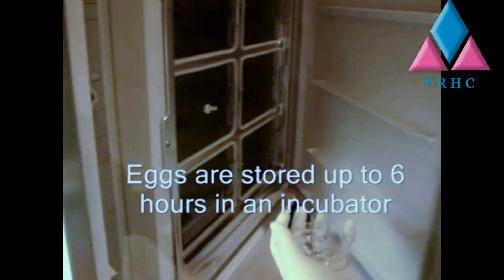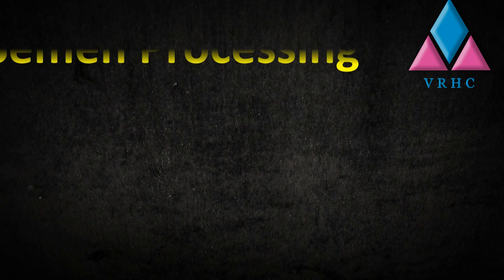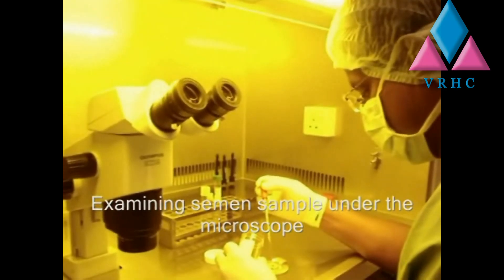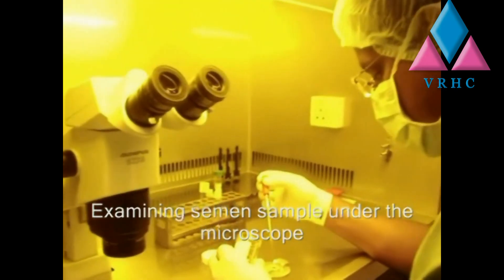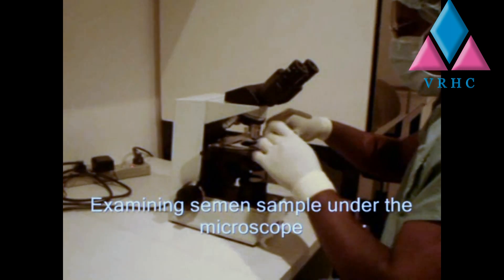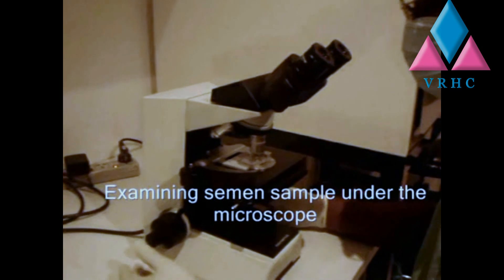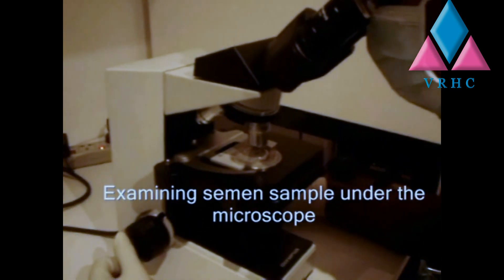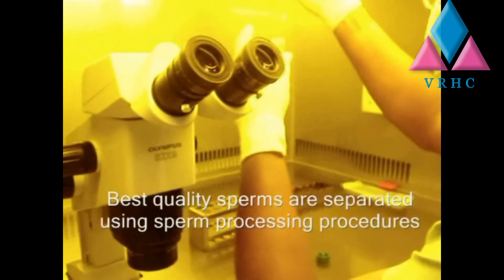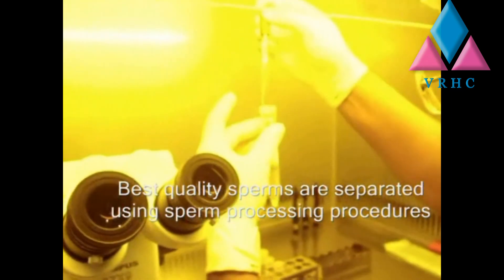Oocytes are incubated for up to six hours. A fresh semen sample is taken on the day of the ovum pickup and examined under the microscope to assess sperm concentration and motility. The sample is then processed to separate good quality sperms using swim-up and density gradient techniques.